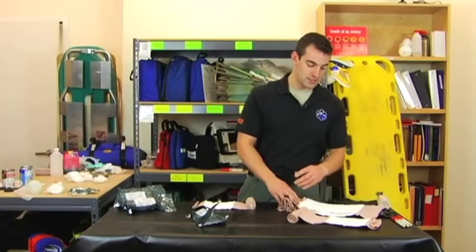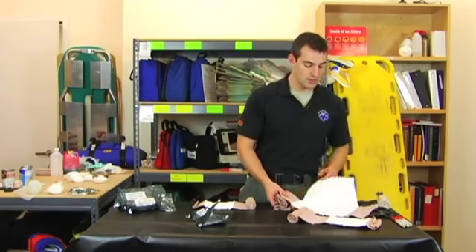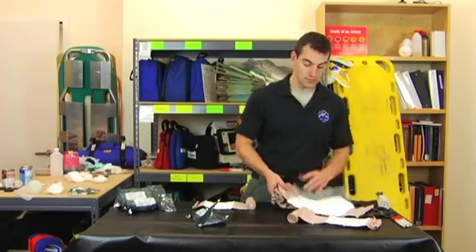On the abdominal pad size, it's folded over, making sure the package is small and compact. To apply it, simply fold open and apply to the wound.